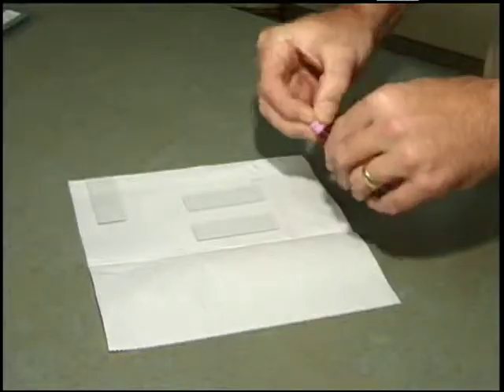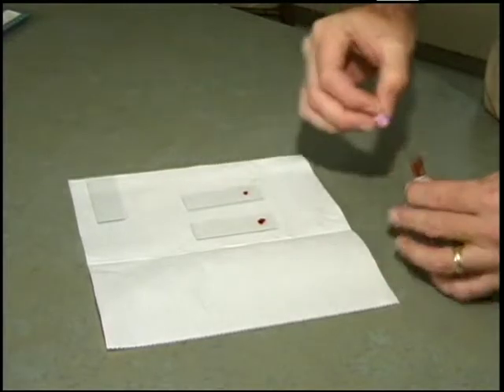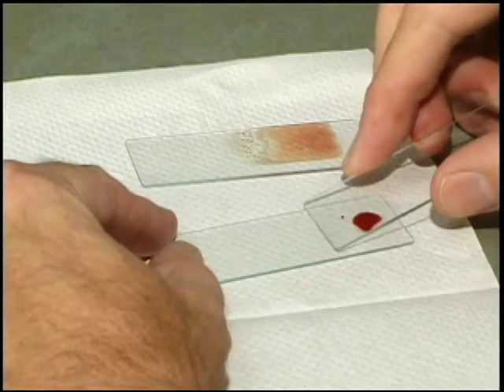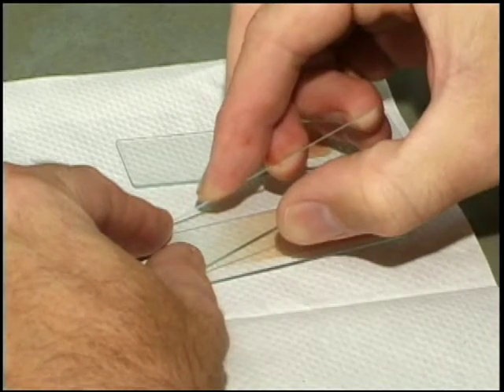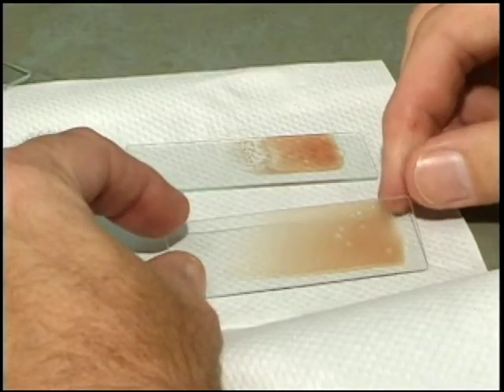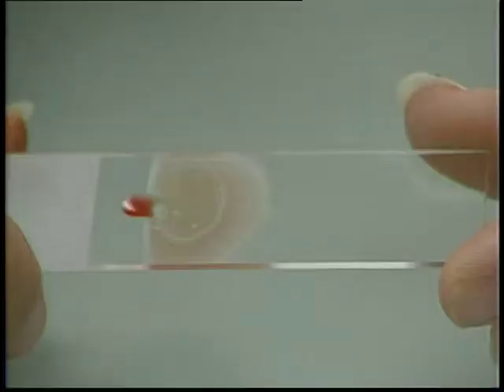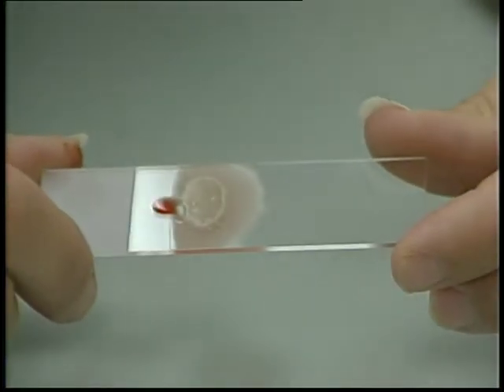A blood smear may be made by placing a drop of well-mixed whole blood at one end of a clean glass slide. The drop of blood can be taken off the rubber stopper, as demonstrated. With another clean slide, back the edge into the drop, allowing it to spread along the edge. Immediately after this has occurred, push the slide forward. This will evenly distribute the blood. The angle and speed at which the slide is pushed are very important variables in creating a readable smear. A good smear will result in a curved, feathered edge with even blood distribution.